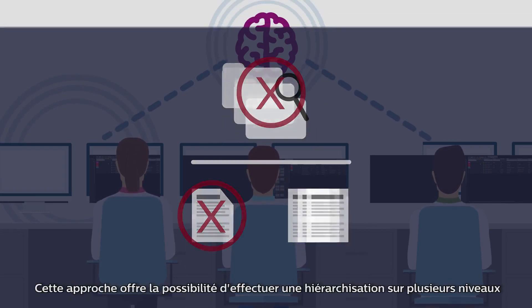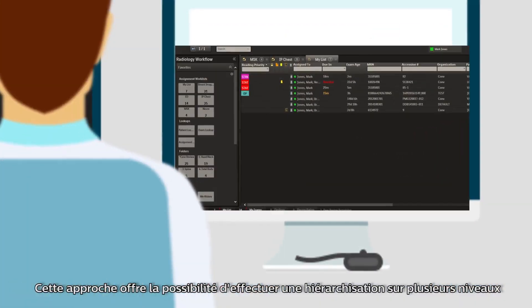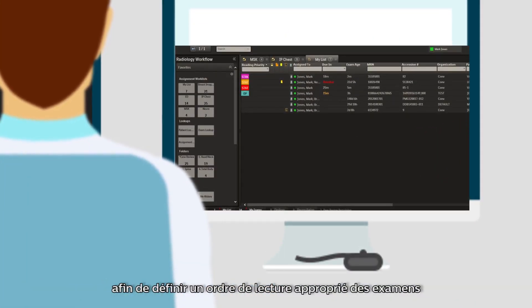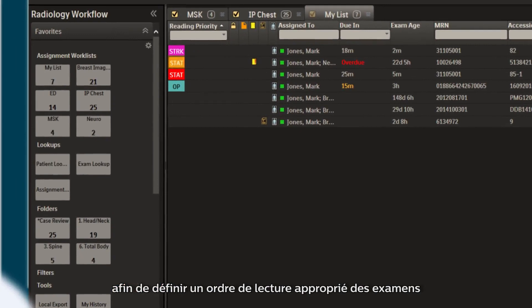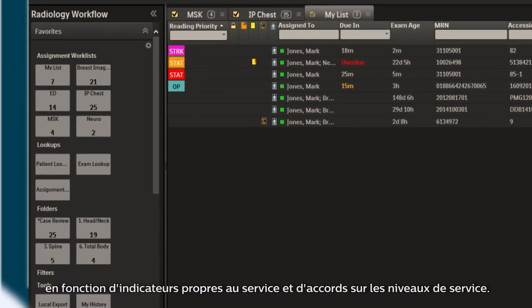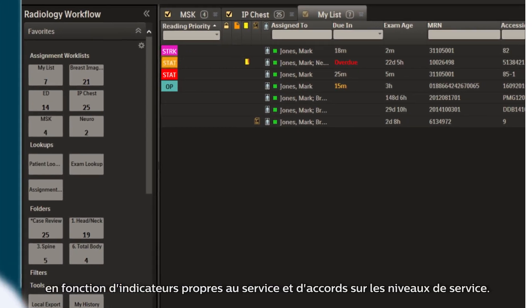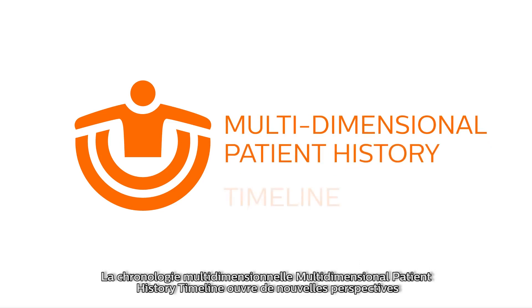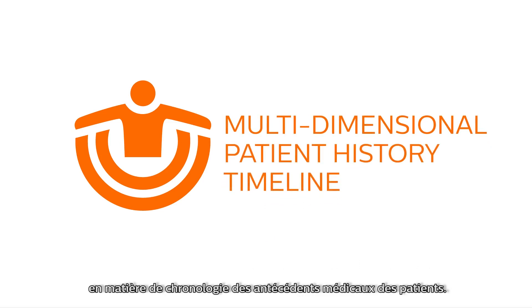This approach provides the opportunity for multi-tiered prioritization to determine the proper order of exams to be read, based on department indicators and service level agreements.